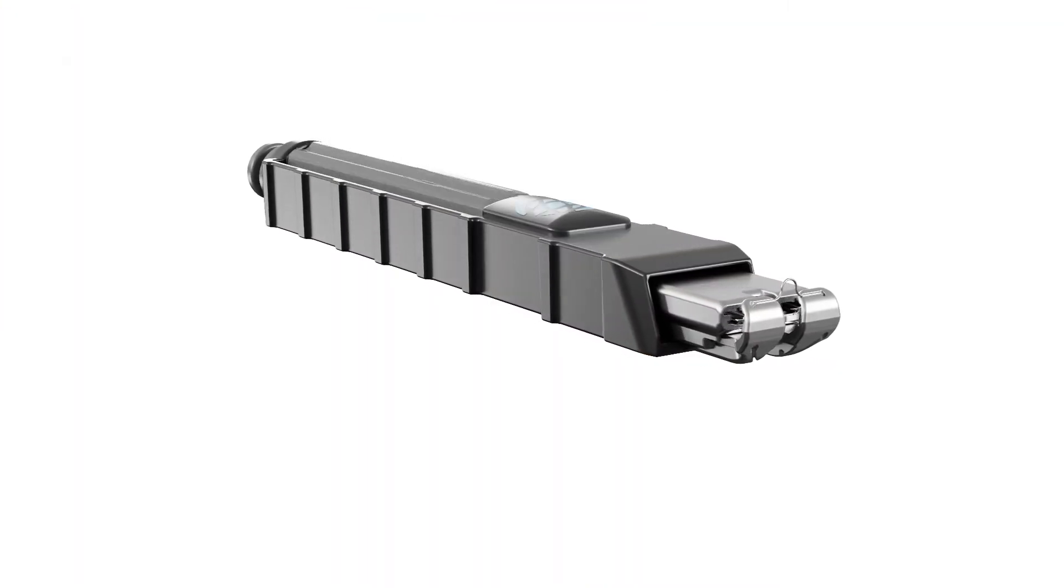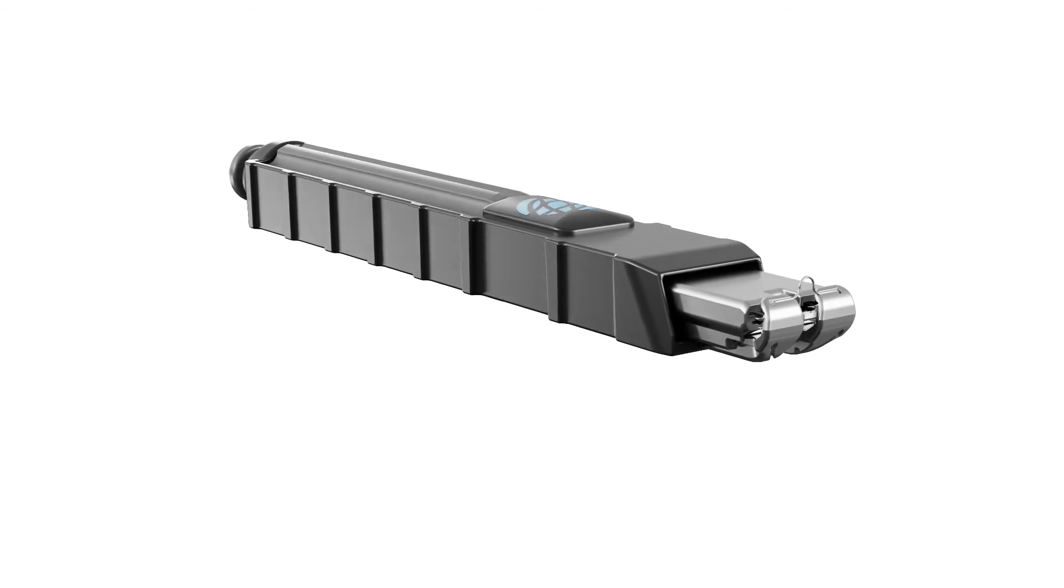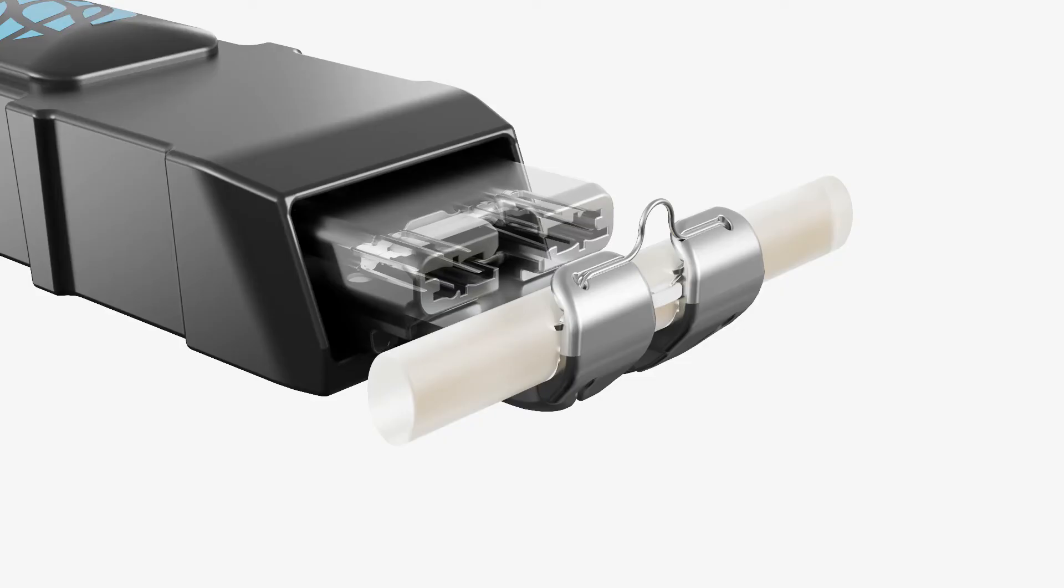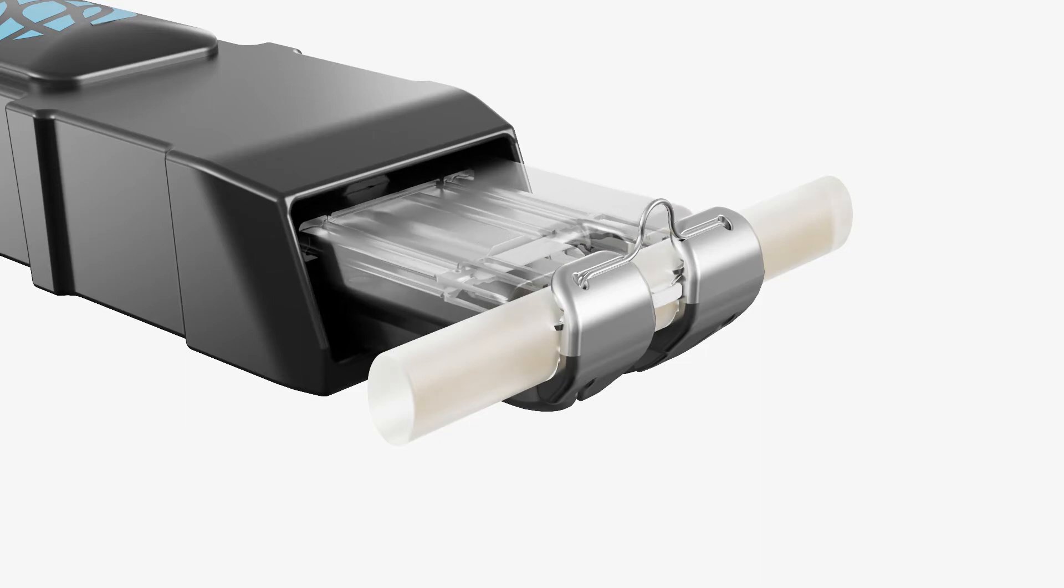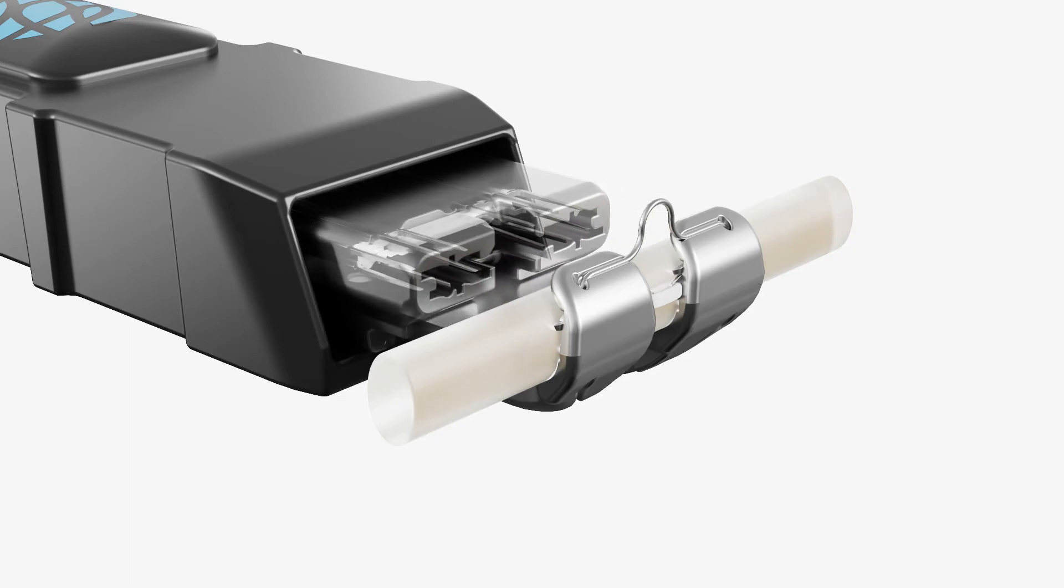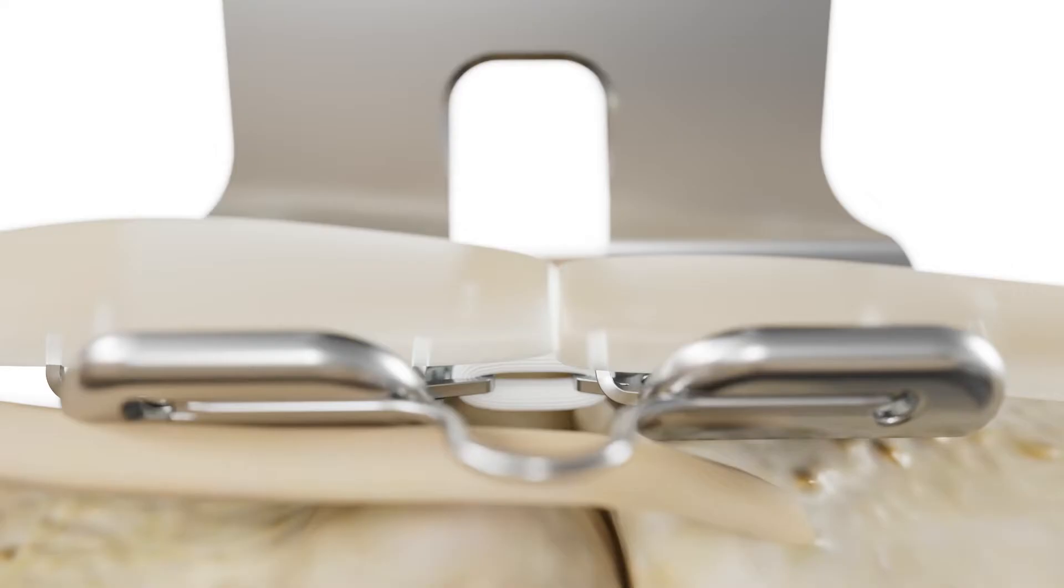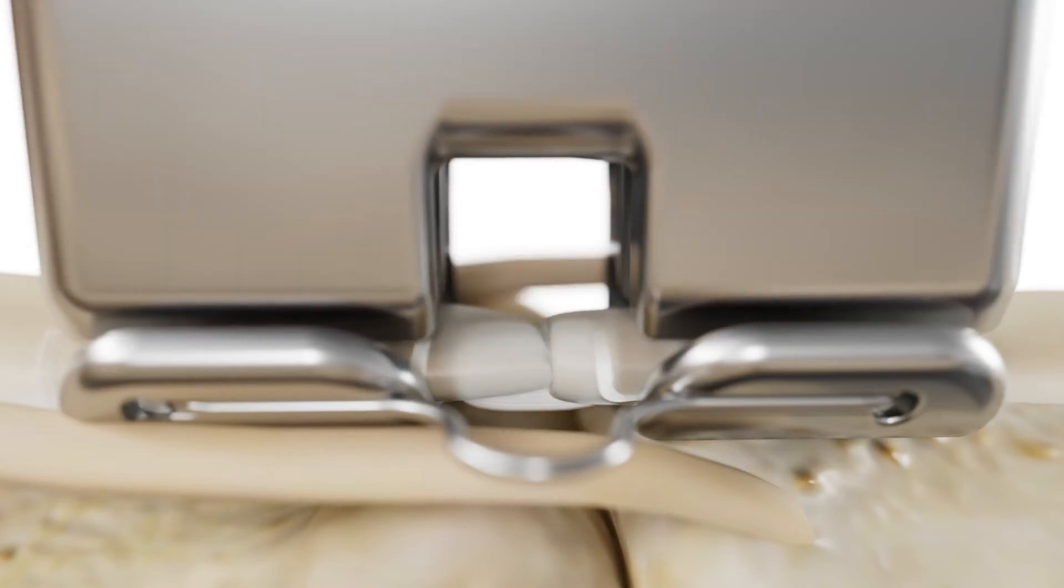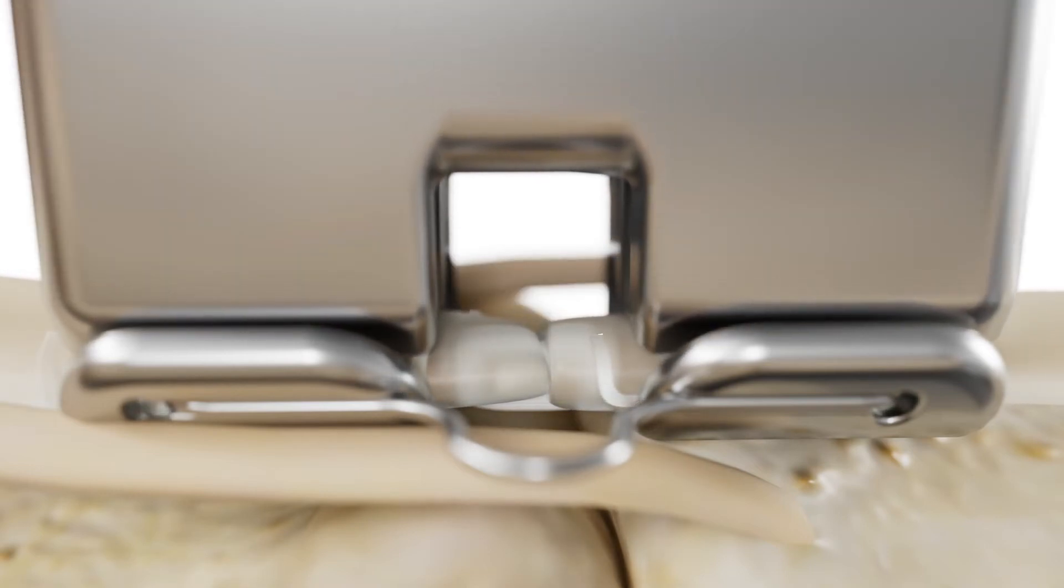The implant mechanism is designed with a spring clutch component that sizes the implant appropriately for tendons between 1.5 and 4mm thick. The spring clutch disengages with an audible and tactile click when the tendon is fully engaged between the cartridge and the cradle, preventing over-compression of the tendon.